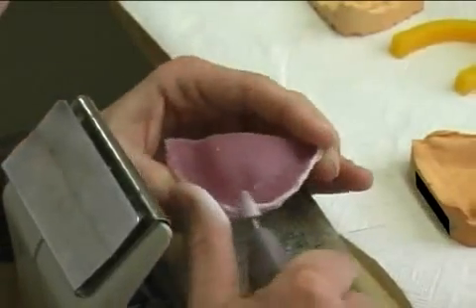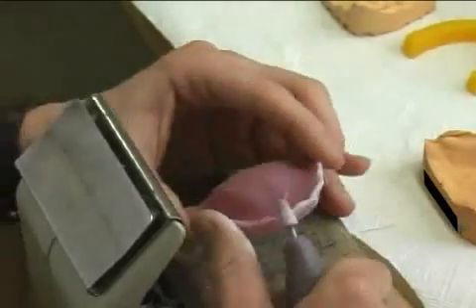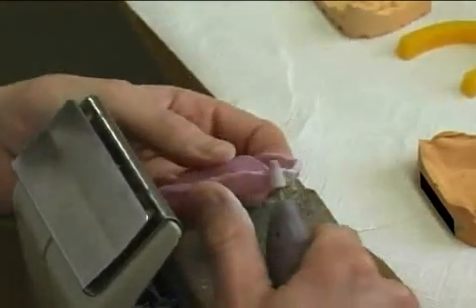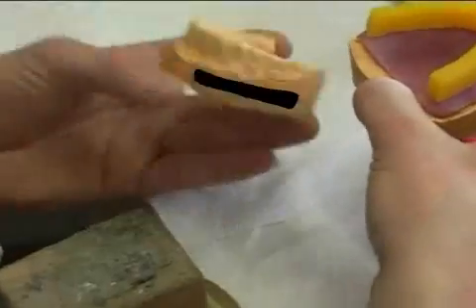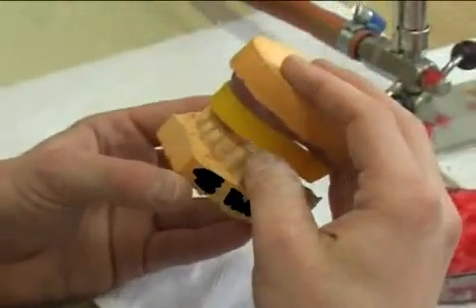In toothless individuals or those with very few teeth, the technician needs a reference point that shows how the jaws generally position or relate with each other. This reference point is provided by the bite template.